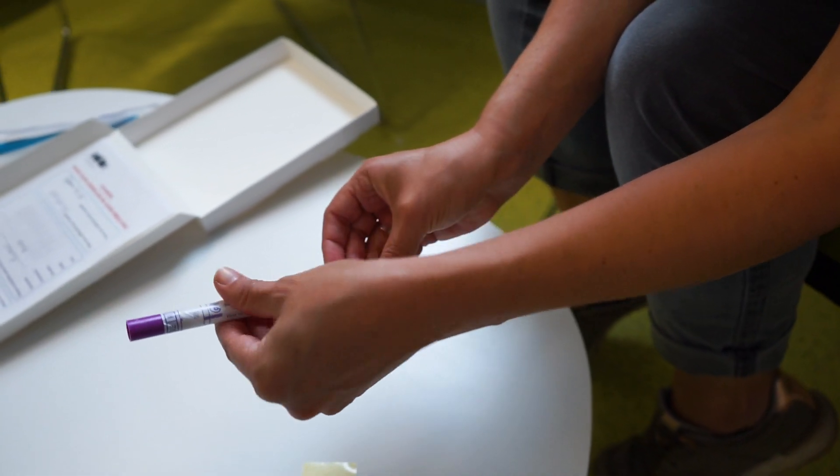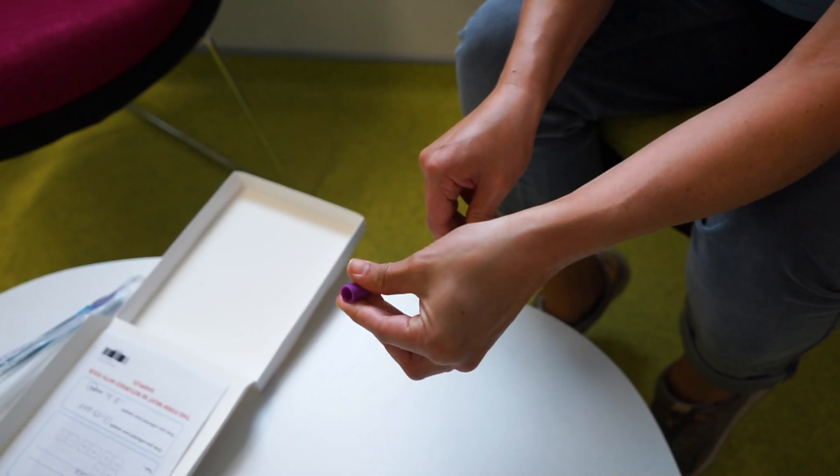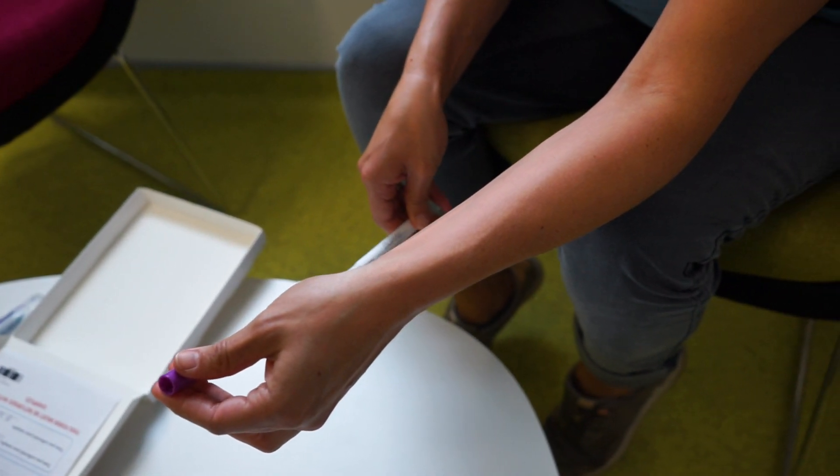Wash your hands and get into a position that you feel comfortable in. Twist the cap of the swab bottle and pull the swab out. Hold the swab by the cap with one hand so the swab tip is pointing towards you.